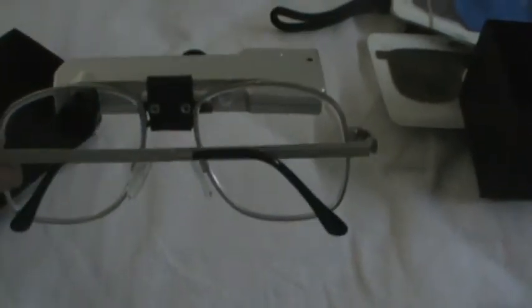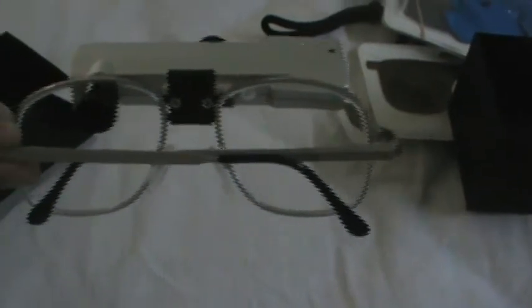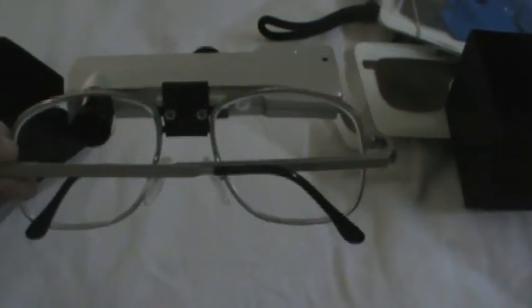What happens is you wear these glasses and while you are wearing it, you are in this position. Let me do it. You are in this position. And when you have to see, you have to tilt your head a little bit, then you can see it properly.